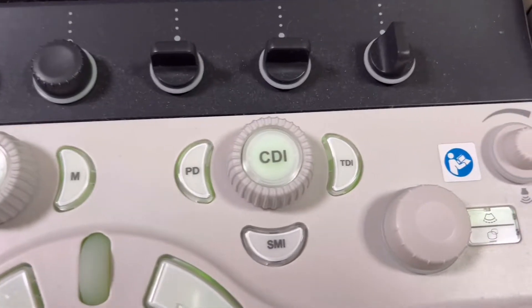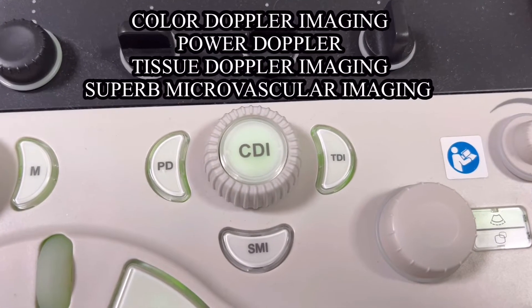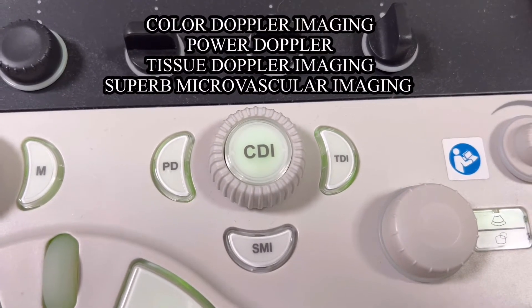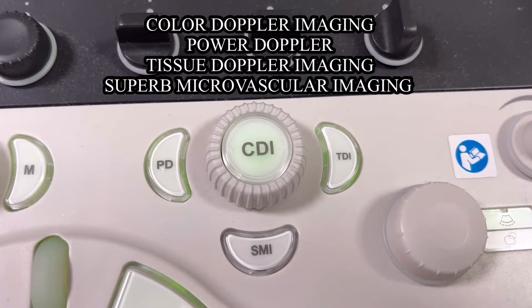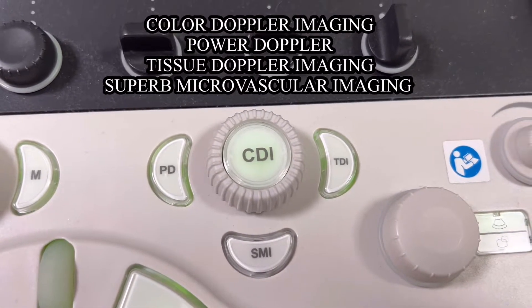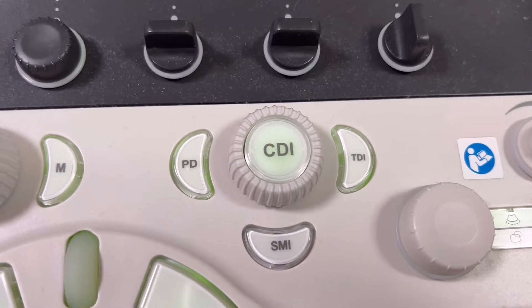These are the buttons essential in vascular studies. We have here the color Doppler imaging, power Doppler, tissue Doppler imaging, and superb microvascular imaging.